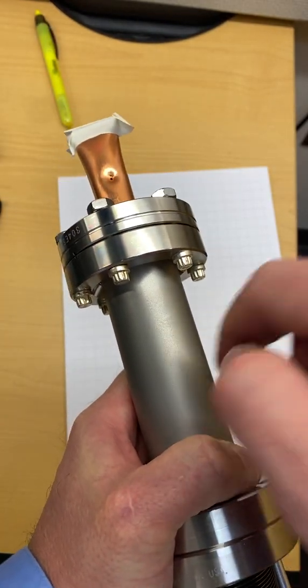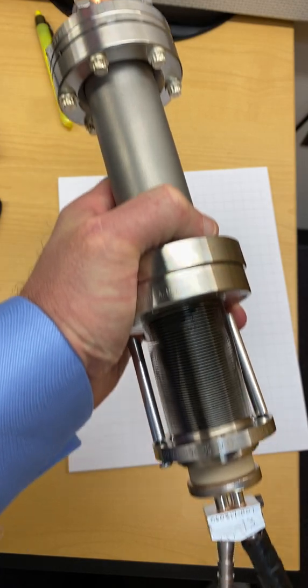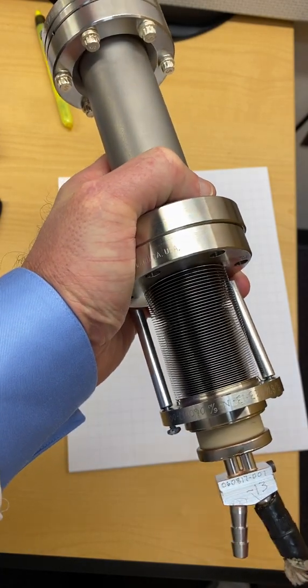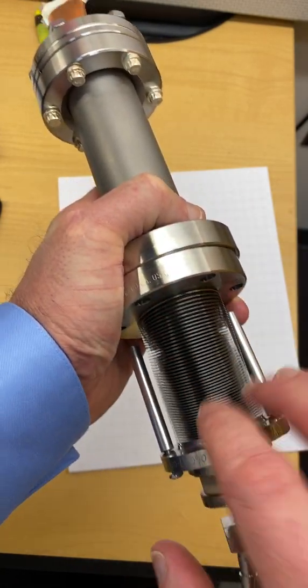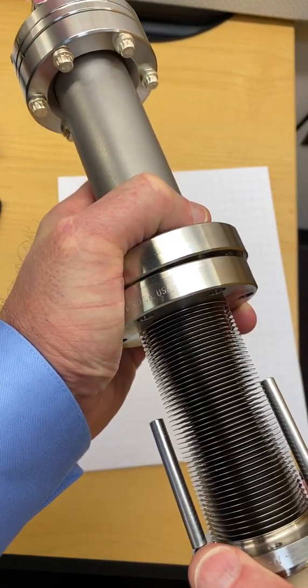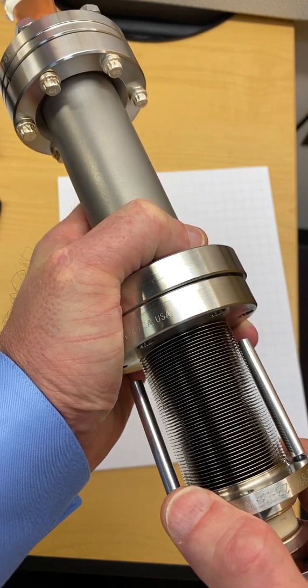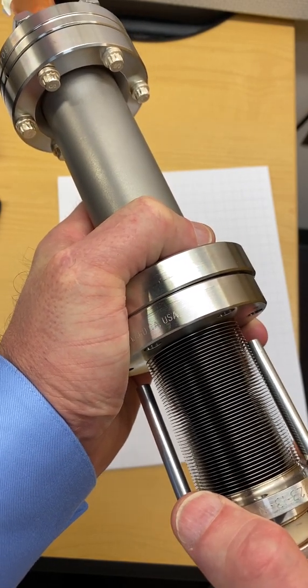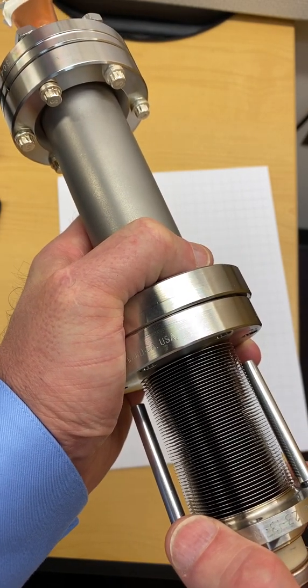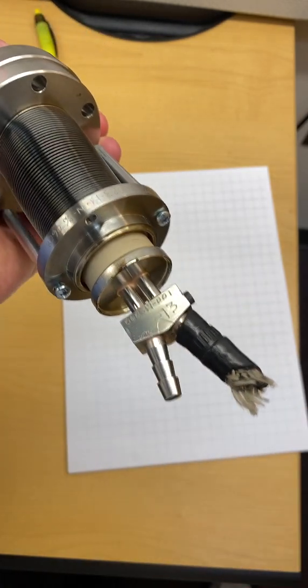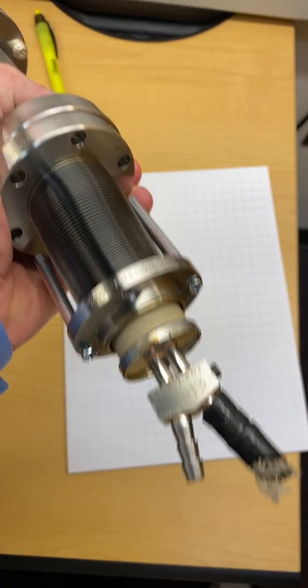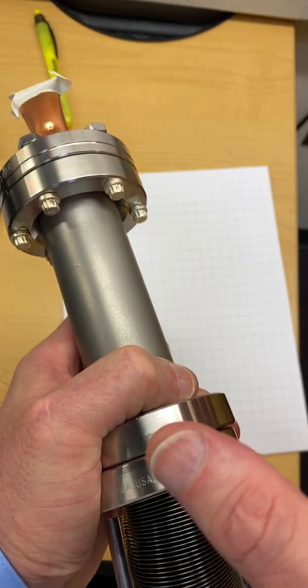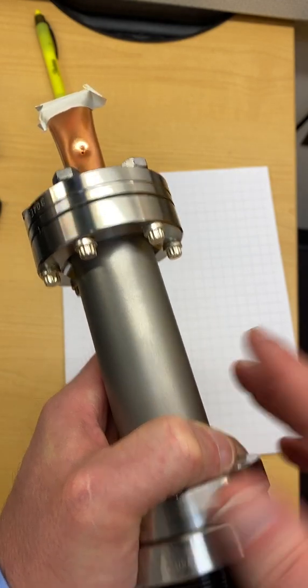For use the beam is going to penetrate this thing. This entire unit is in a vacuum. It's got this fancy spring here to allow the target to shift between 6 MV and 16 MV position so the machine is going to position it specifically. It's got cooling lines coming out the back and this whole thing had to be replaced because of that damage.